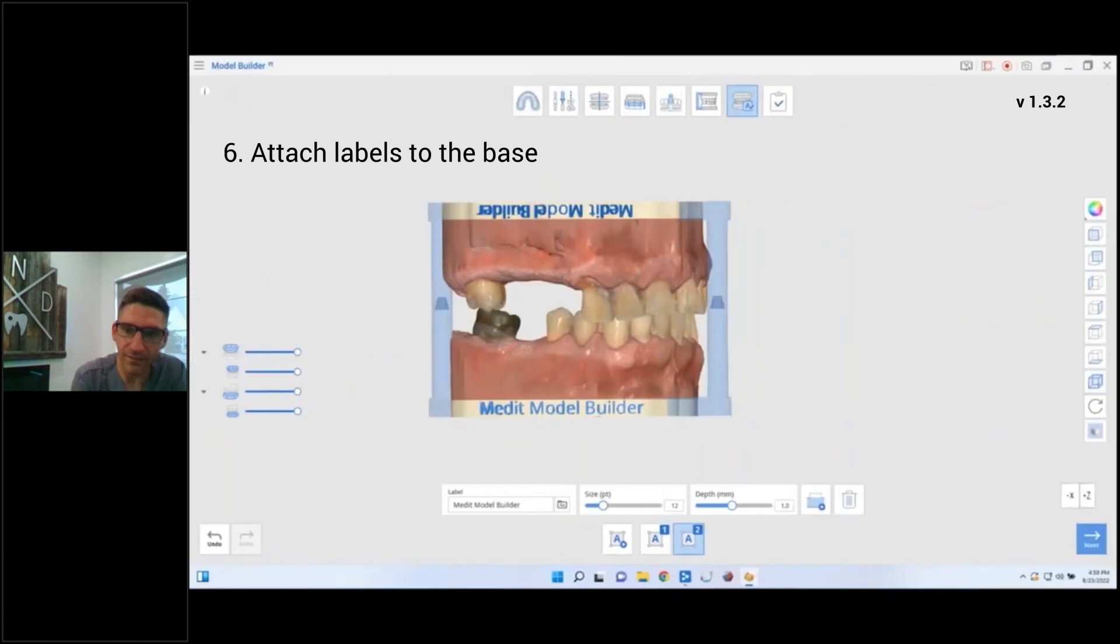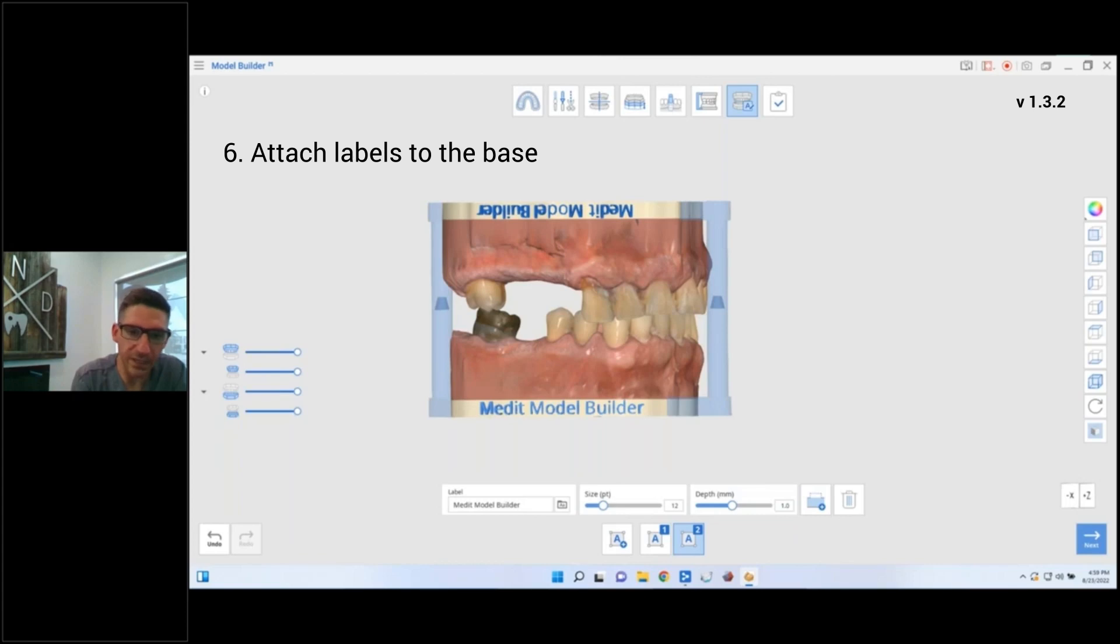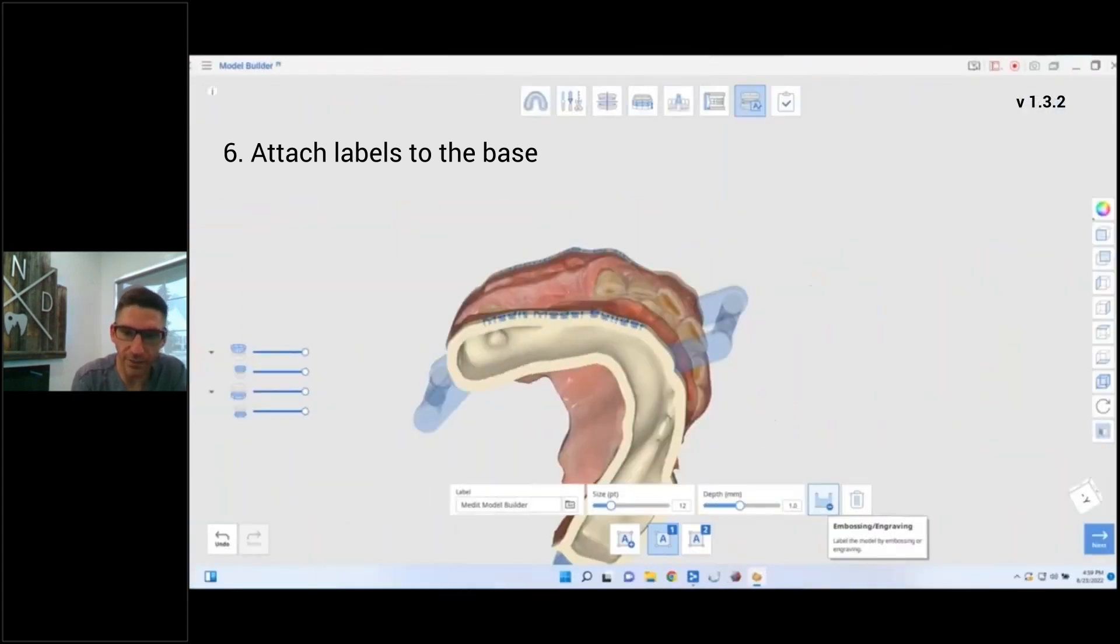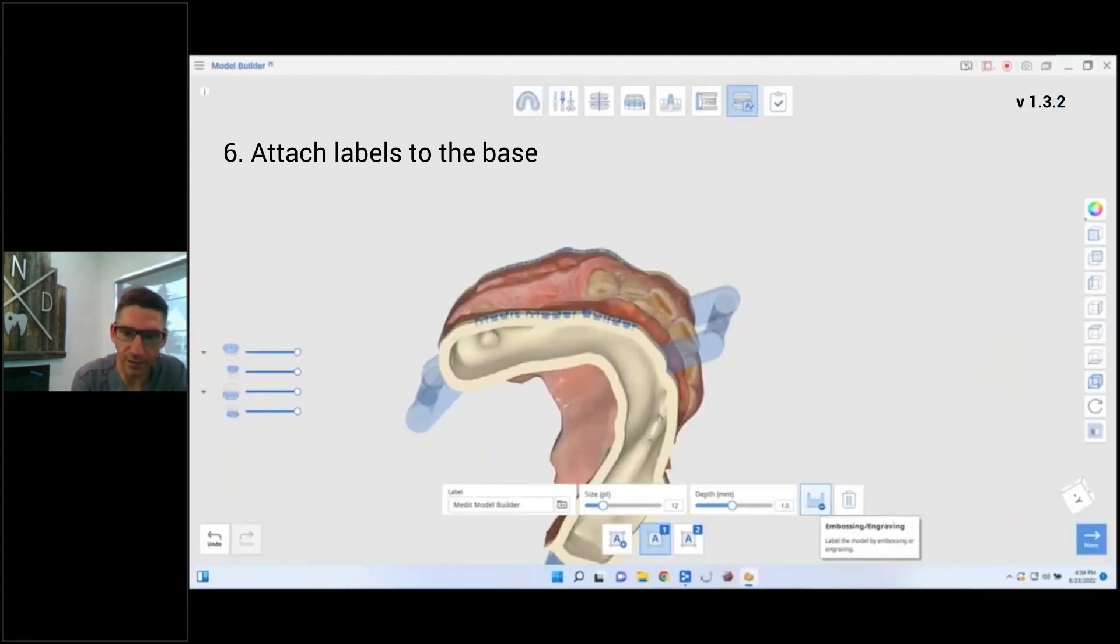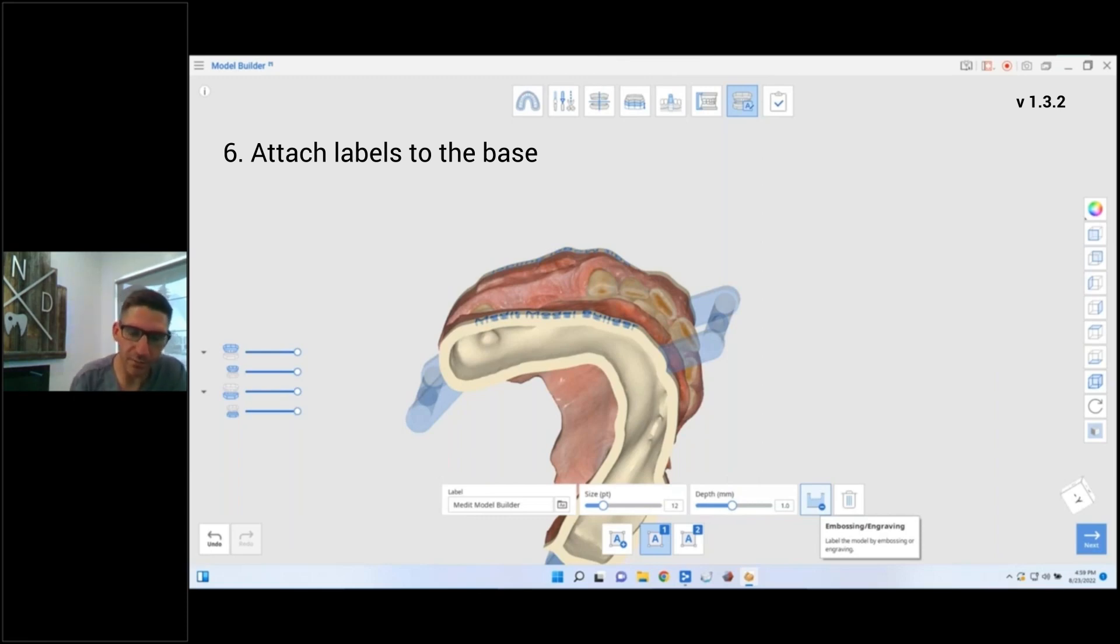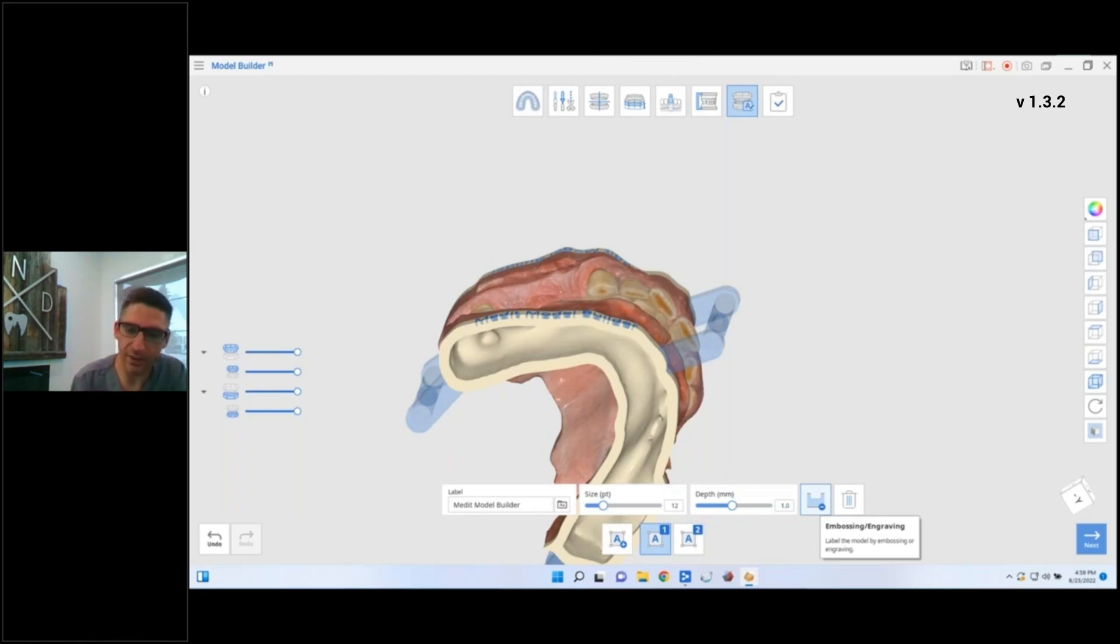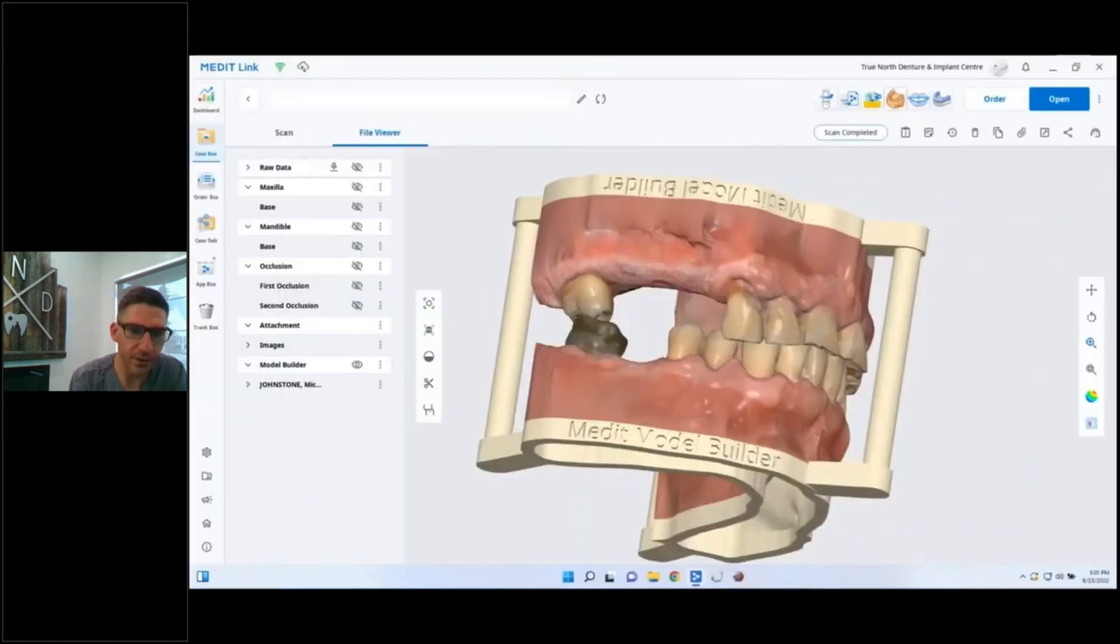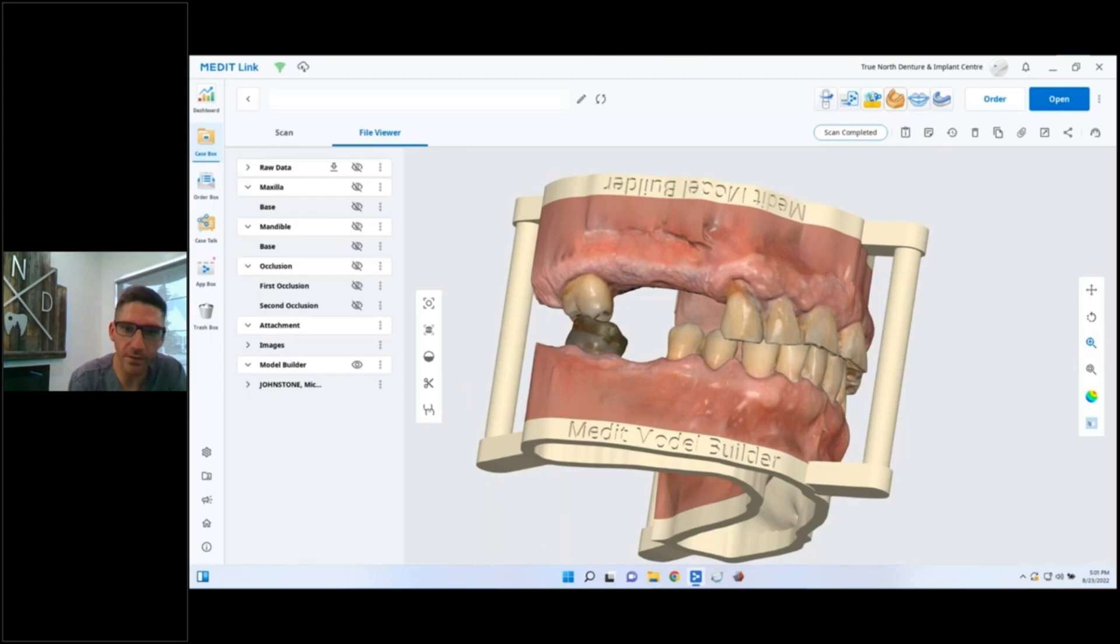And then the final part is putting a name in. So when you're putting the name in, you can pick different fonts, different sizes, whatever you want to do. The one thing you want to keep in mind is, are you embossing it, are you engraving it? Big recommendation would be engrave it, because if you're 3D printing and it's sticking out, it's a bit of a mess. And there we go, there's our models, there's models for our partial dentures all ready to print and ready to go.